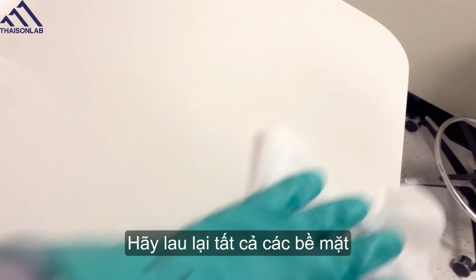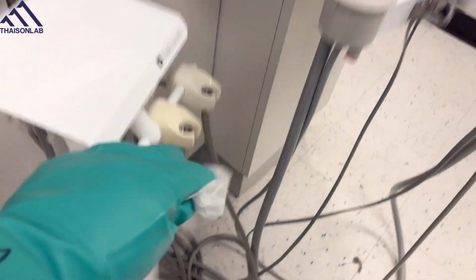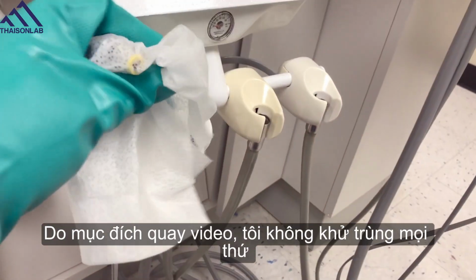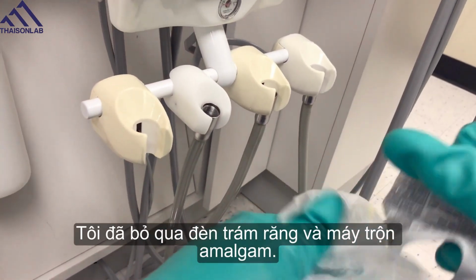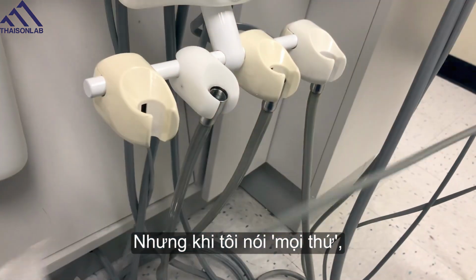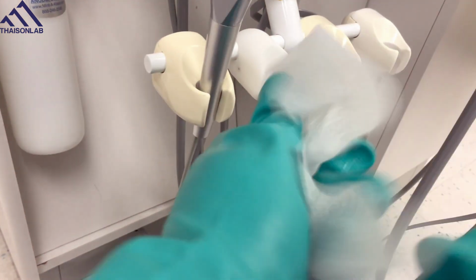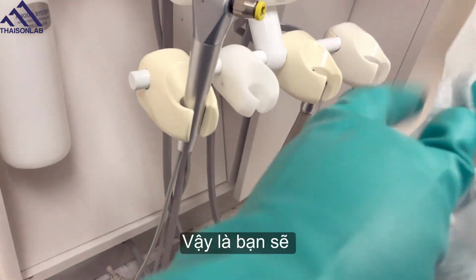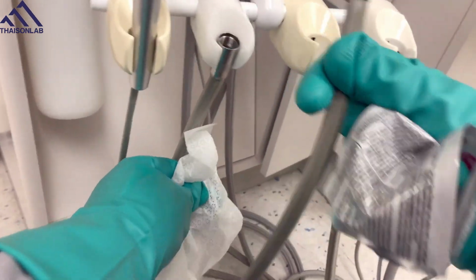Go through all the same surfaces that you disinfected previously. Now for video purposes, I'm not getting everything. I didn't get the curing light or the amalgamator. But when I say everything, I mean everything as far as clinical contact surfaces goes. So you go through and you just re-wipe everything that you wiped in the first step.